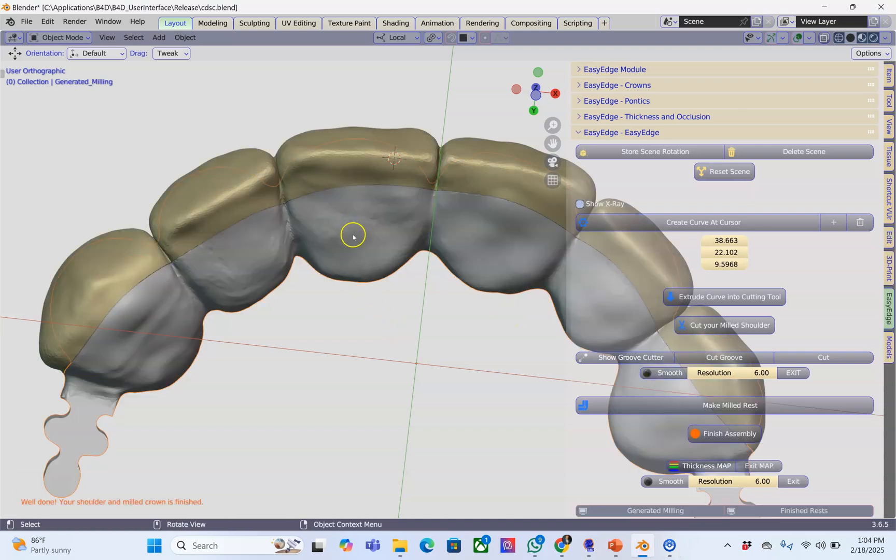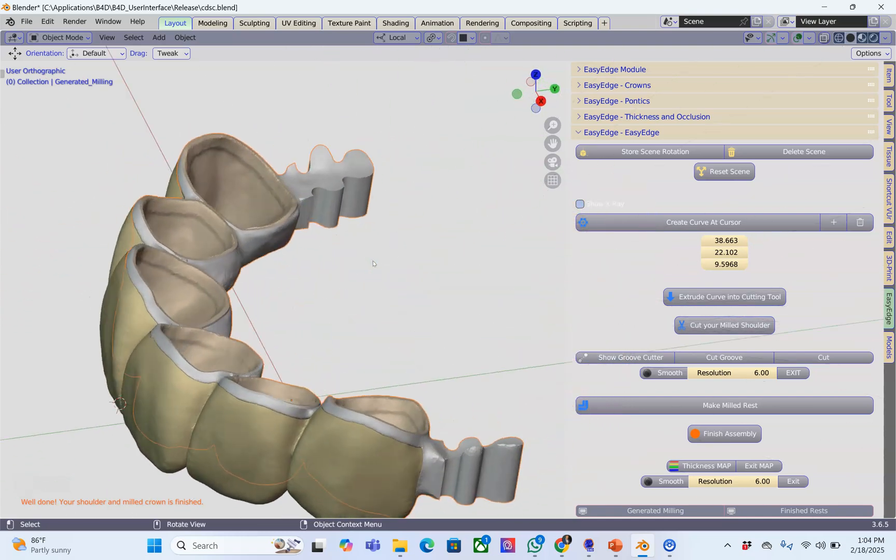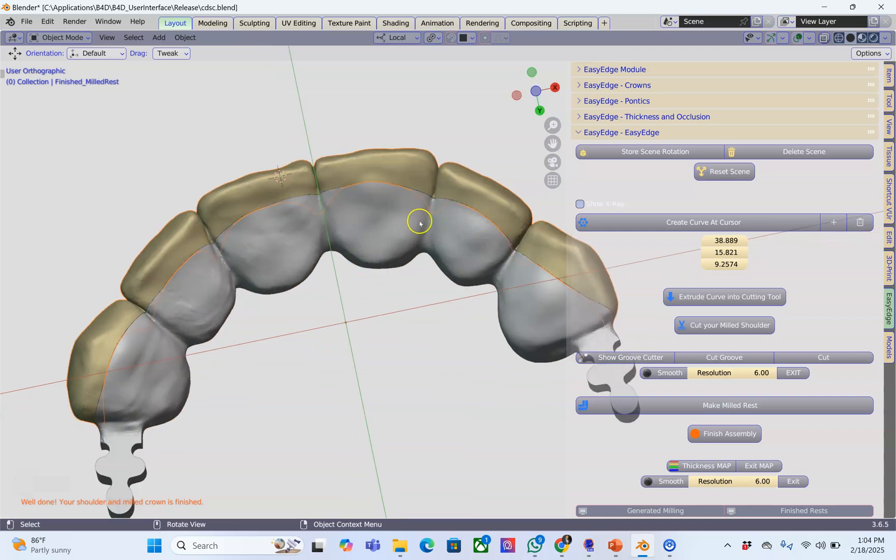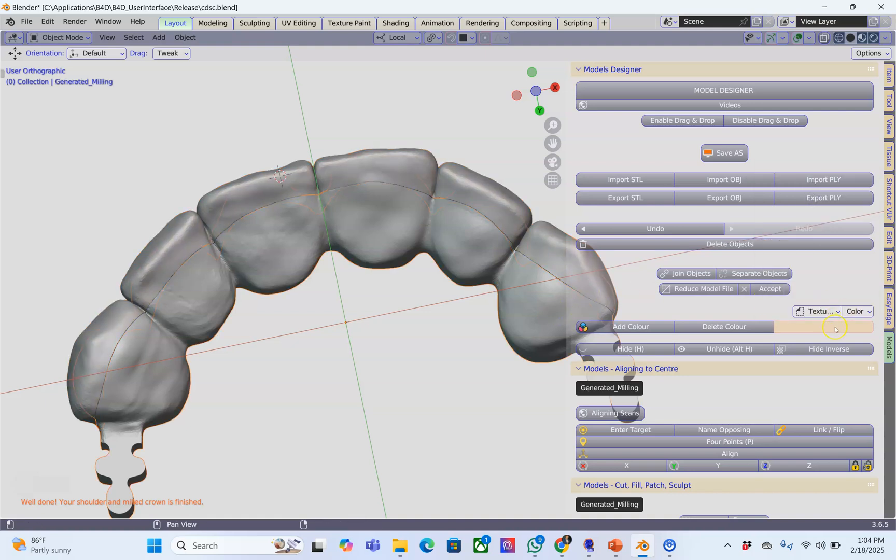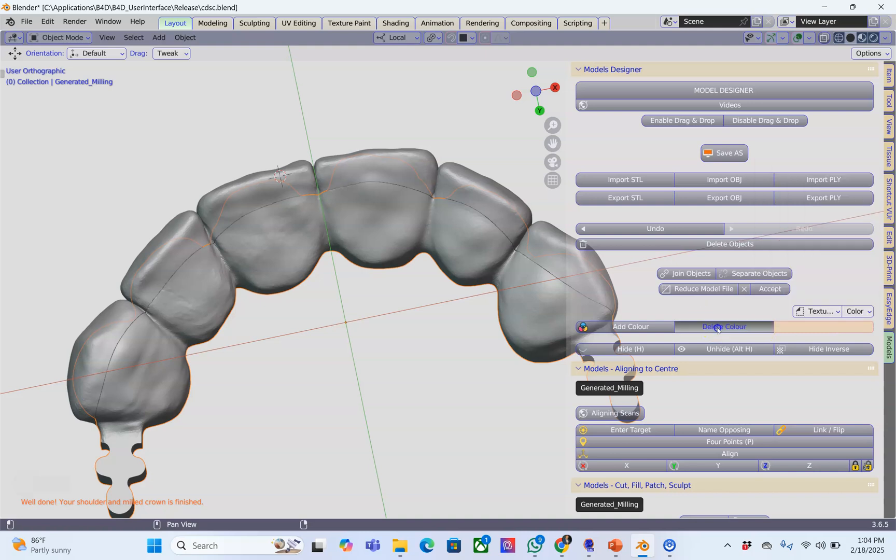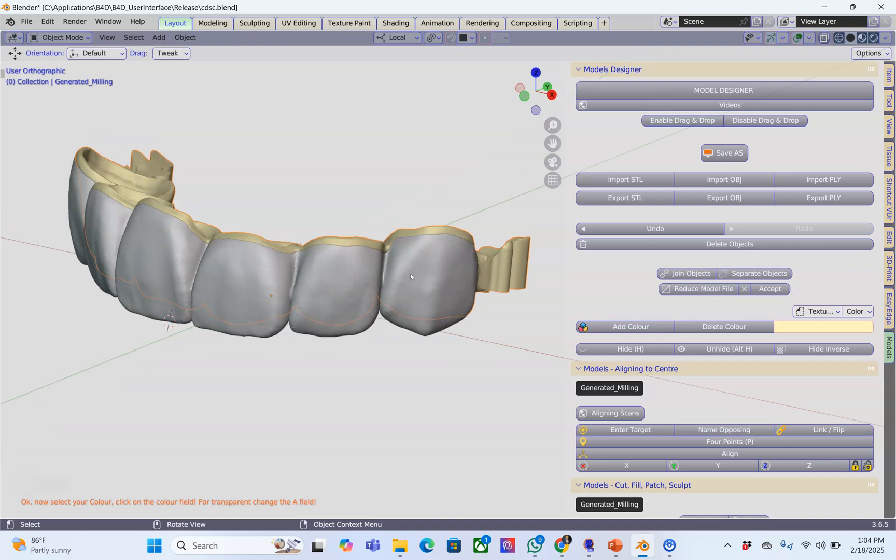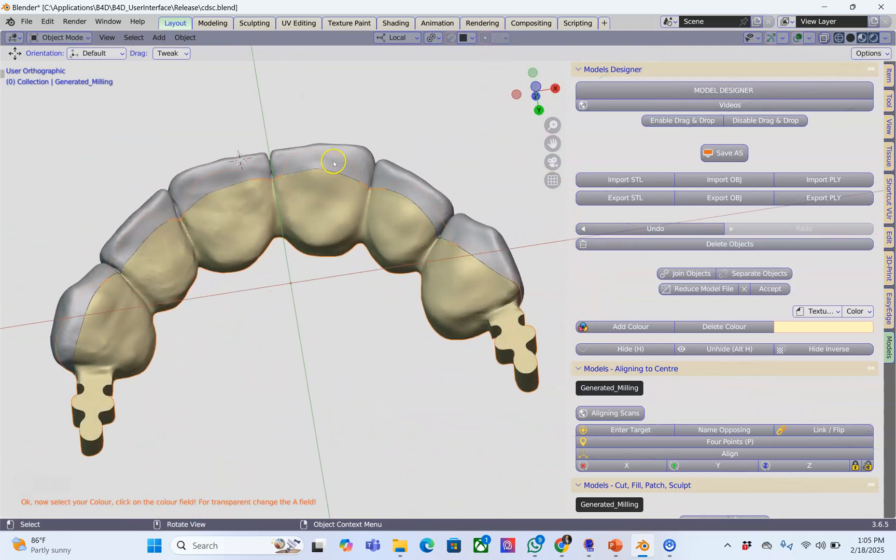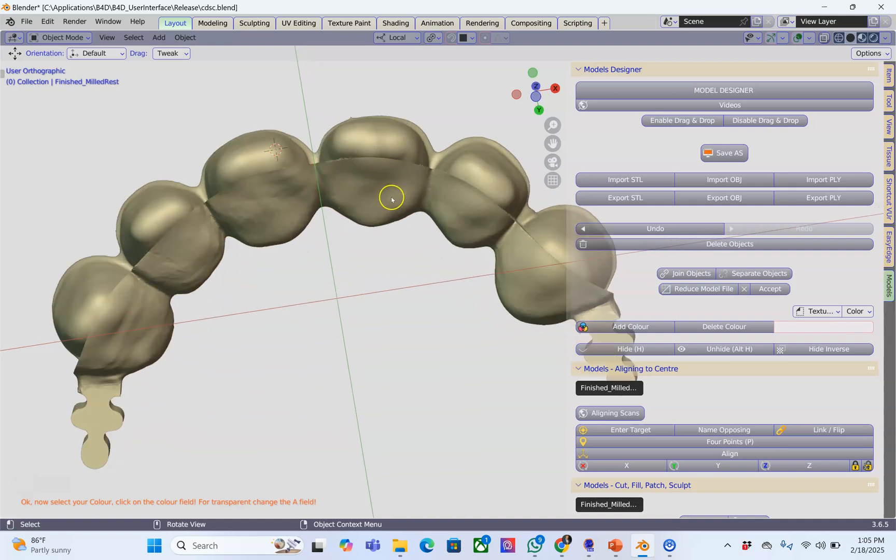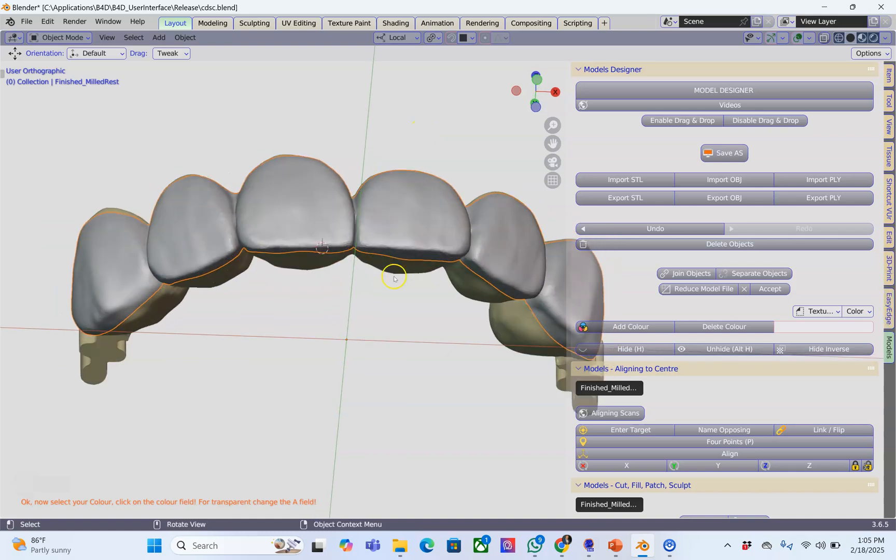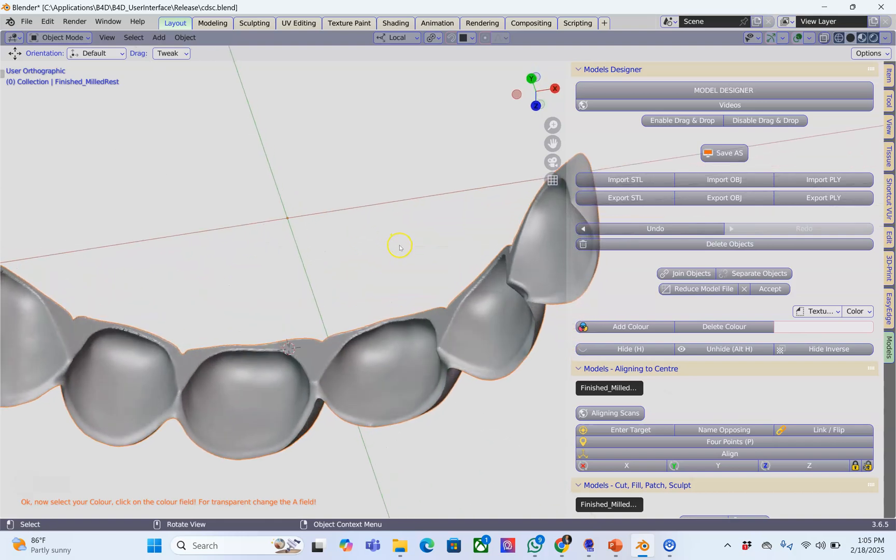Hopefully we've got part A and part B done with the air space in between. Like magic we've got our veneered surface. Of course the colors are made to be milled surfaces and this is why it's gold. I'm just going to change that over here. Let's make this white and make this a little bit different in color. Delete color and put a new color over here so we can visualize how this is going to pan out. Perfect, very happy with the result. Let's hide the one and have a look at the other side.